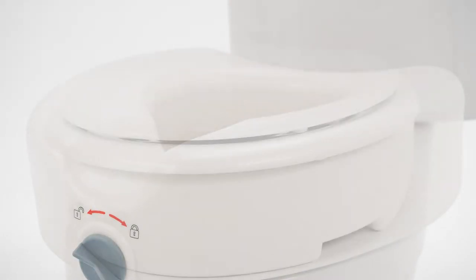It has a more comfortable and traditional look. Unlike a typical raised toilet seat, you use your own toilet seat that sits on top of the toilet seat riser.